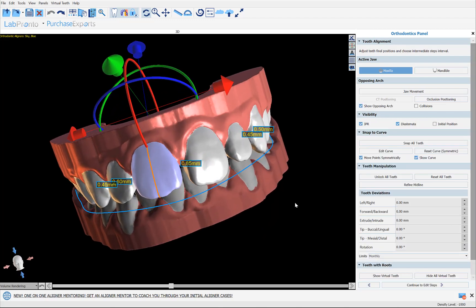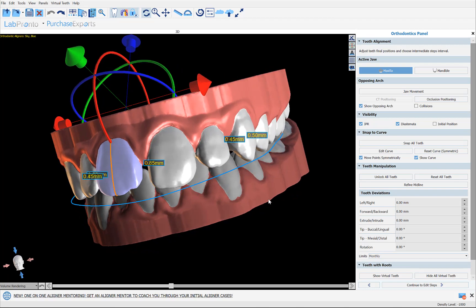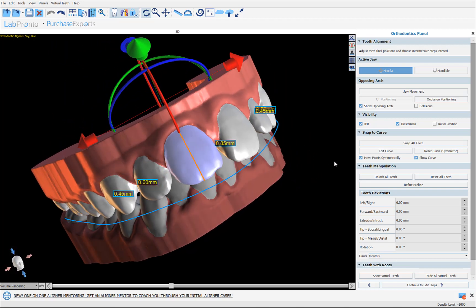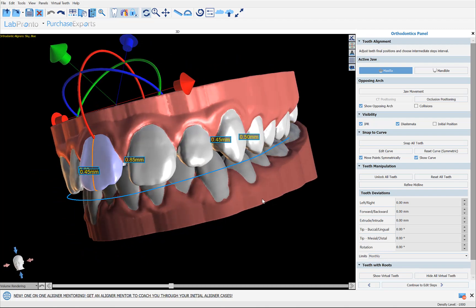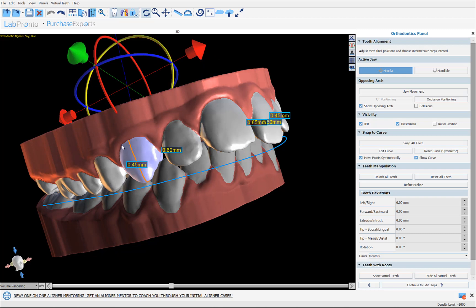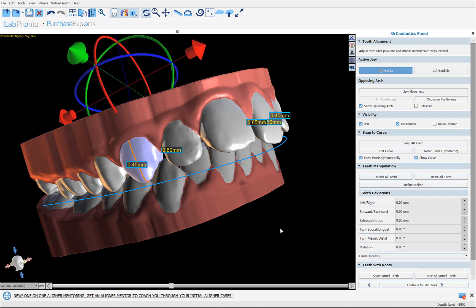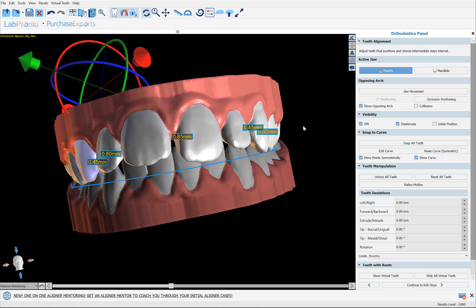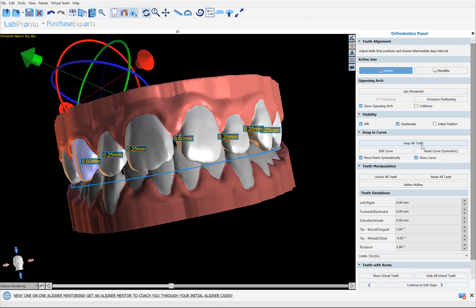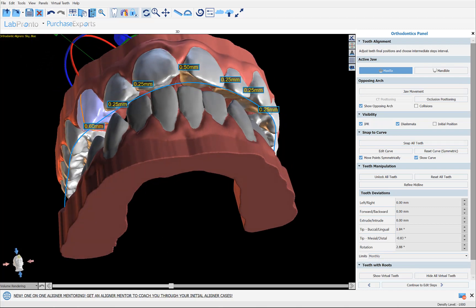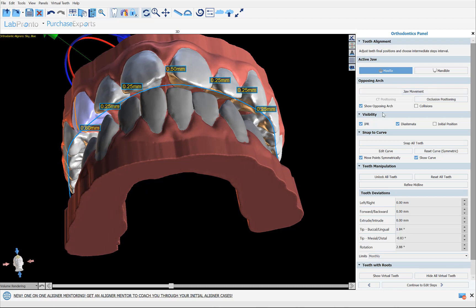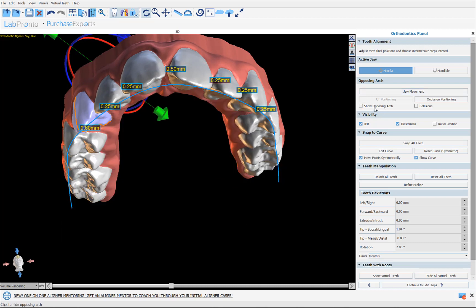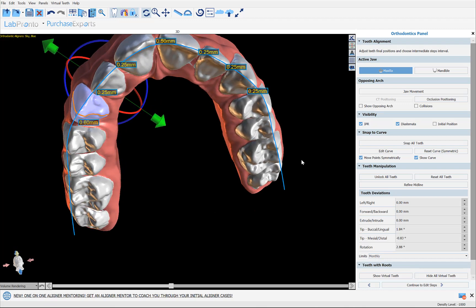We're now at the point of creating the digital tooth setup. We can see improved rendering of the gingiva both at this stage and as the teeth move. Clicking on any individual tooth shows the widget with the midline of the tooth — if the midline needs adjustment, simply click Refine Midline, reposition using the widget, and then unclick Refine Midline. You can get an initial digital tooth setup by selecting the relevant jaw and clicking Snap All Teeth. To modify the curve, click Show Opposing Arch to remove it, then click Edit Curve.